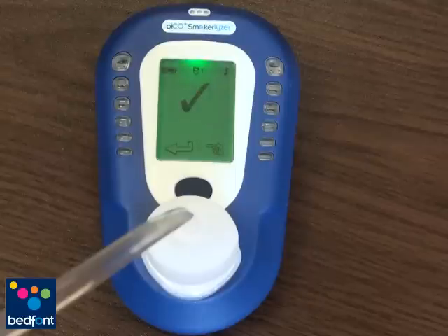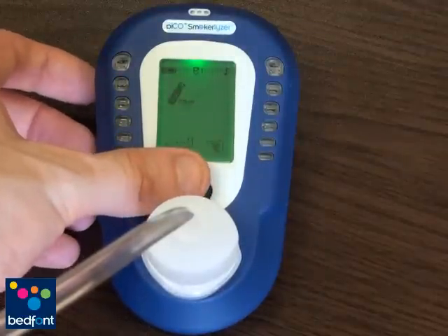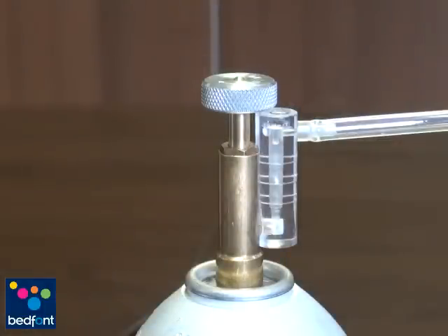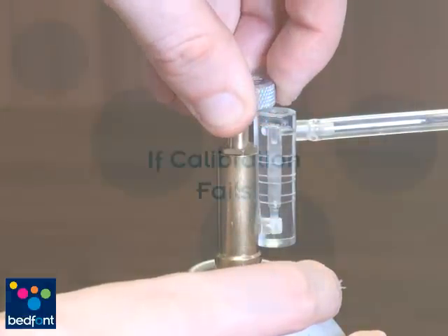If the displayed reading is within 5 and 40 ppm, it will automatically set to 20 ppm and will ask you to confirm by a tick. It is very important to confirm the calibration at this stage with a double click in order to save the calibration. Turn off the gas flow and remove the D-piece sampling system. Your PicoPlus is now ready for use.